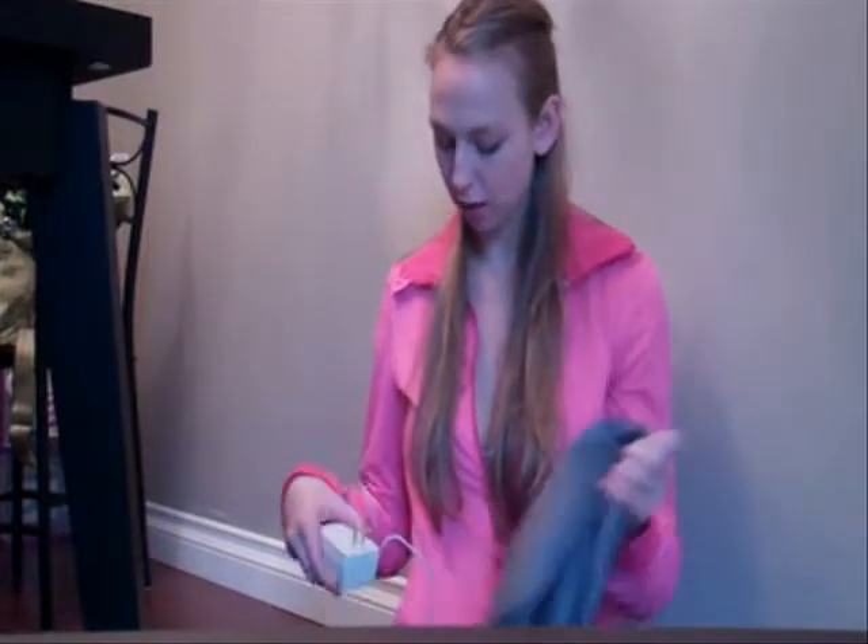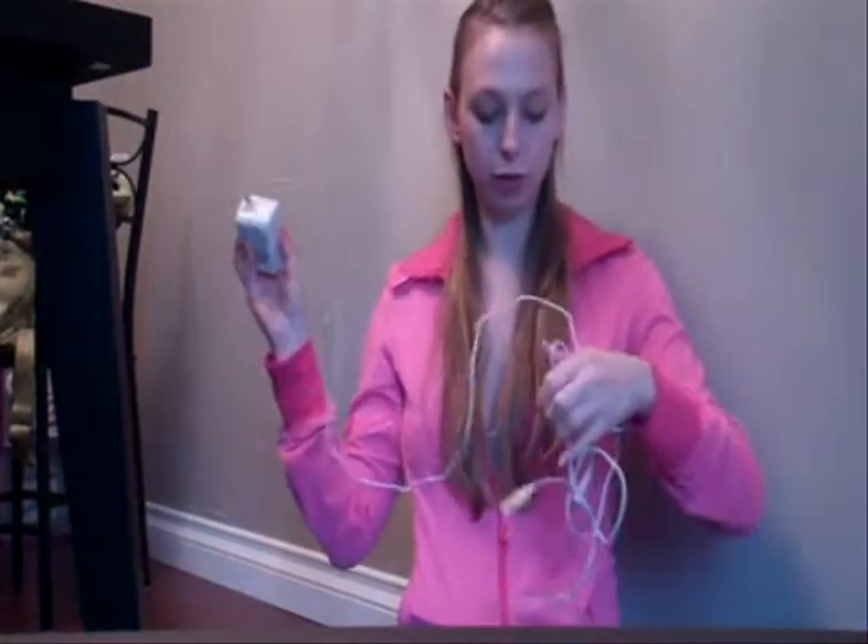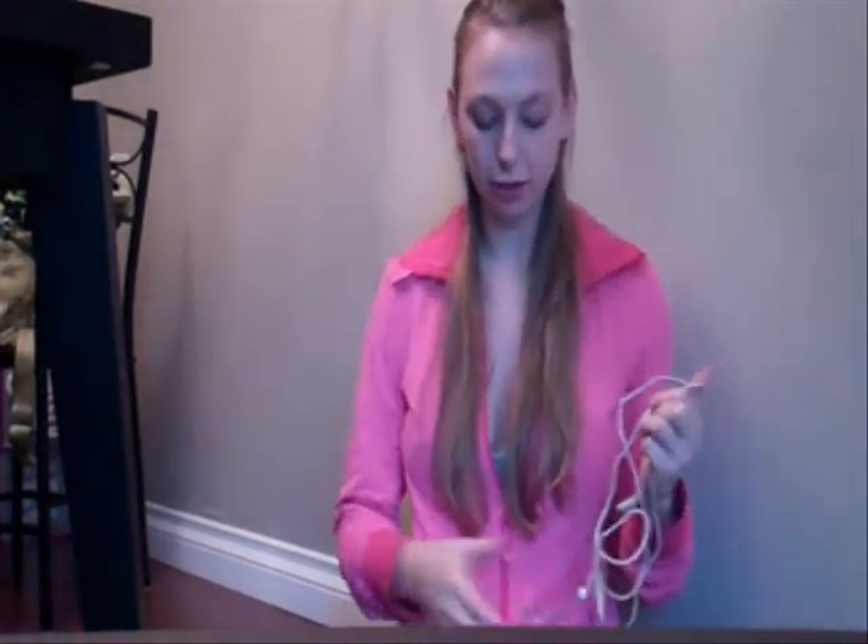It also comes with just a cord for plugging into the wall and then your tubing. Mine came with a Medela bottle as well — the full bottle and the nipple and everything. I think the new ones come with the anti-colic bottles or something like that.